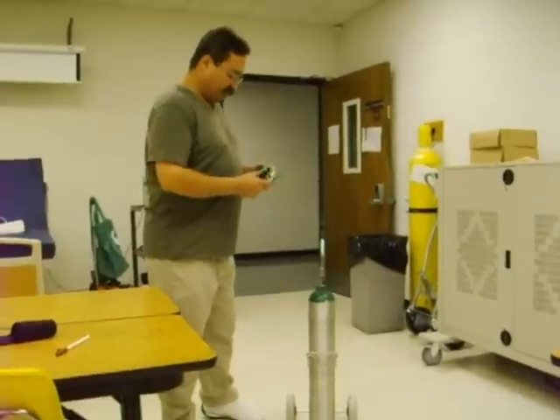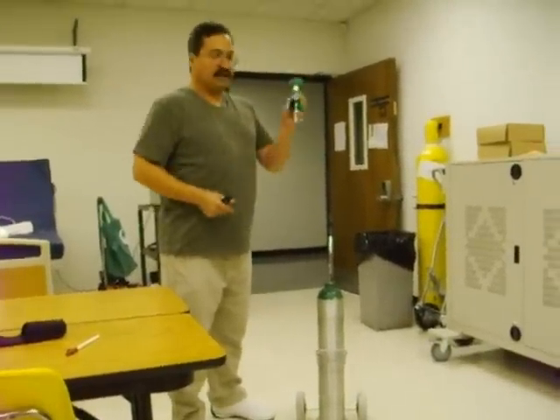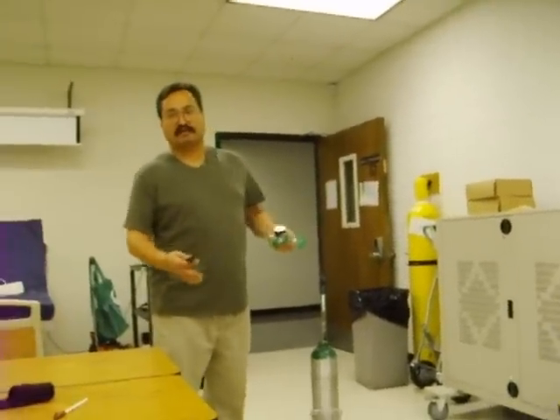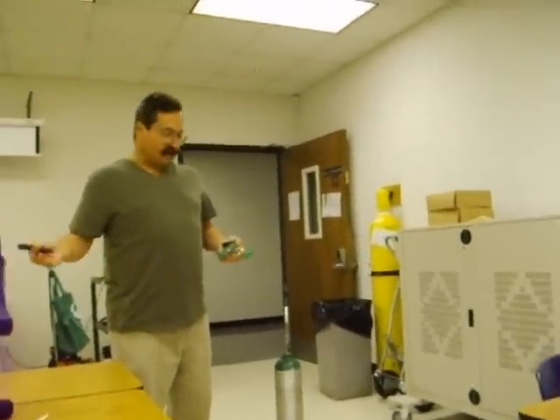This tank is definitely enough to transport the patient. We've got a Bourdon gauge regulator because it works in any position, depending on whether it's in the ambulance, on a stretcher, or in a medical helicopter.